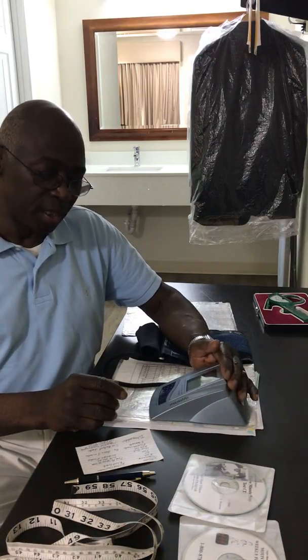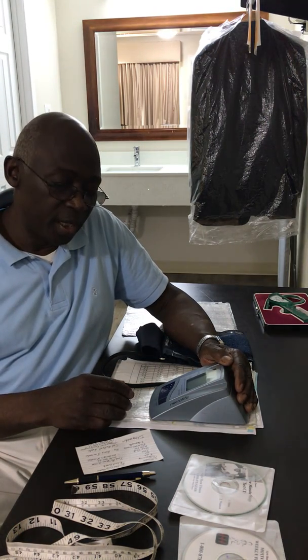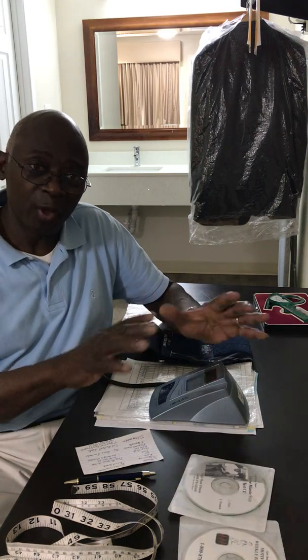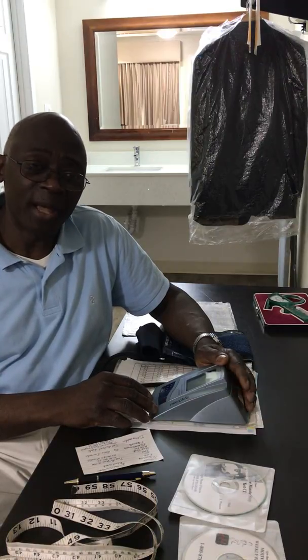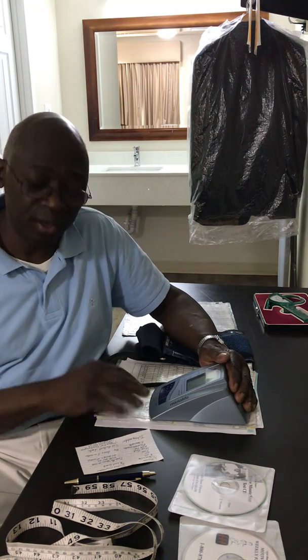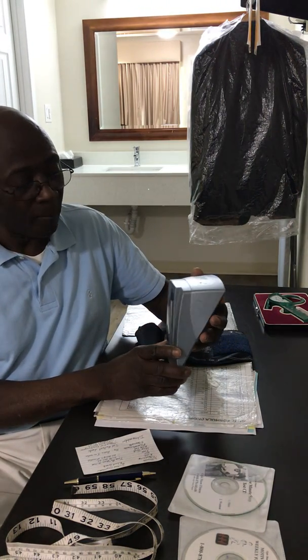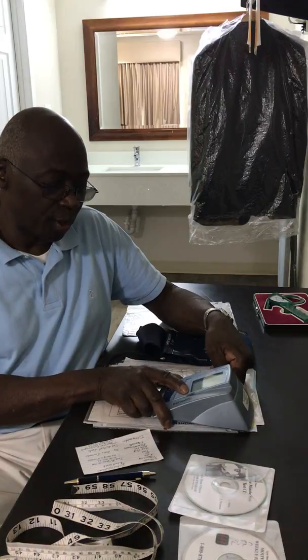It's very difficult to find good stethoscope units today without incredible expense, and self-taking units are particularly hard to find. I've gone through a number of companies that have just watered down that market. So I look for an electronic unit that I find most reliable. If it's consistently 10 points higher, we can make an adjustment for that. The best model I've found is the MicroLife, which is a Costco purchase, and it's been very consistent.